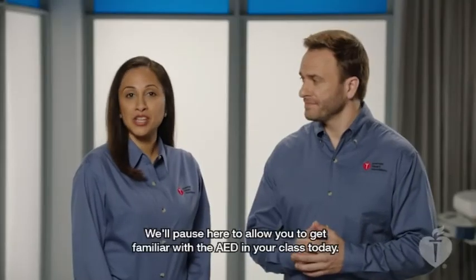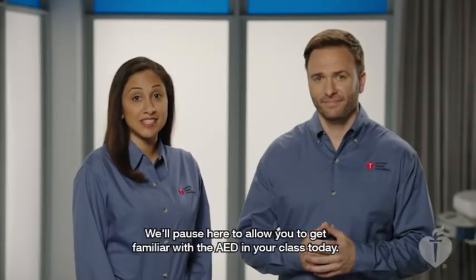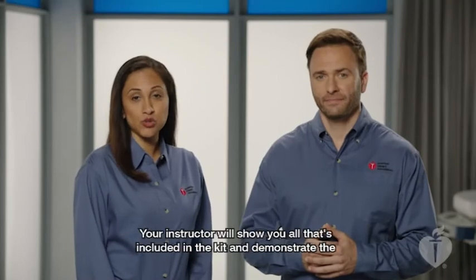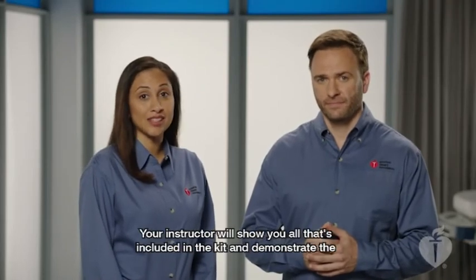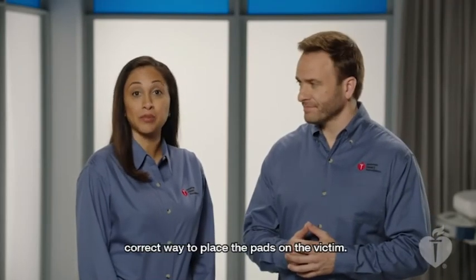We'll pause here to allow you to get familiar with the AED in your class today. Your instructor will show you all that's included in the kit and demonstrate the correct way to place the pads on the victim.